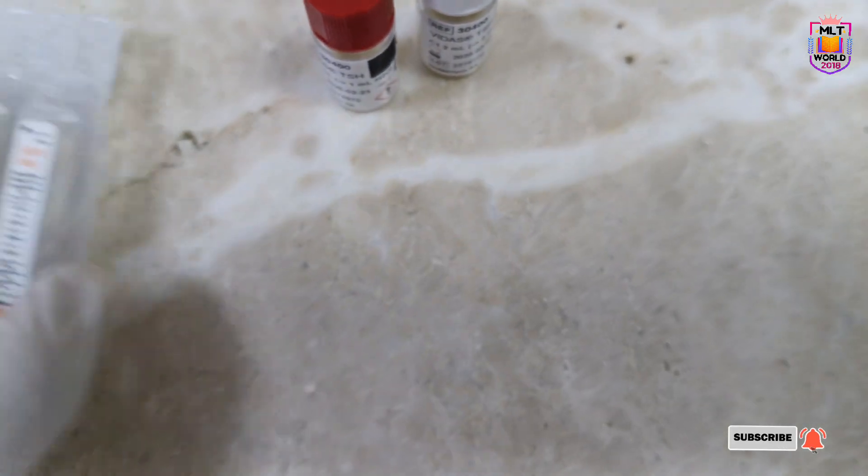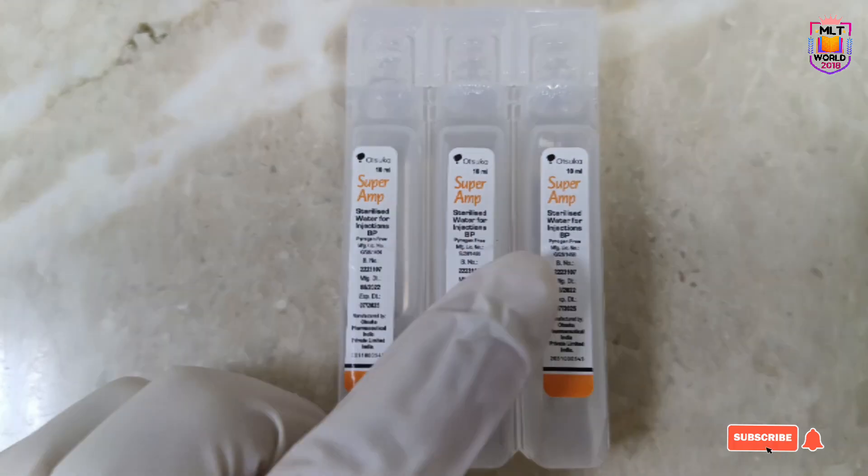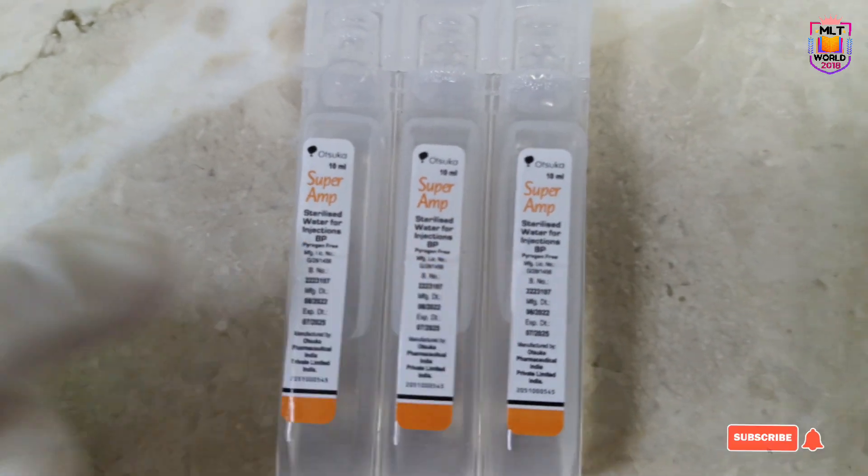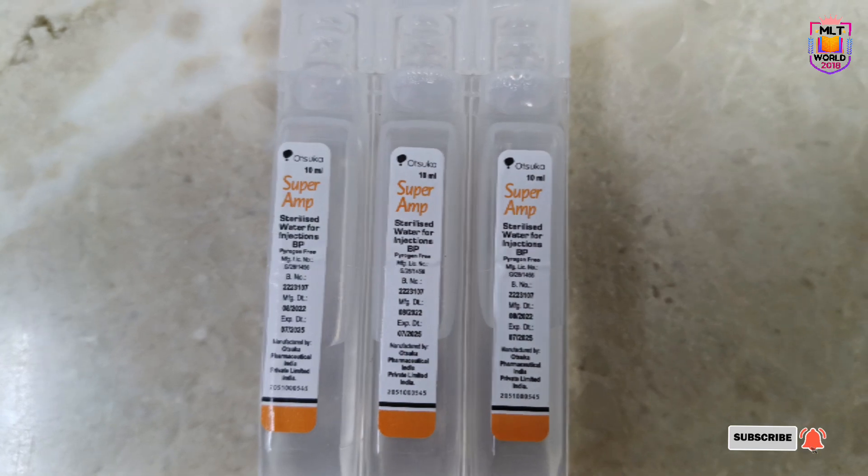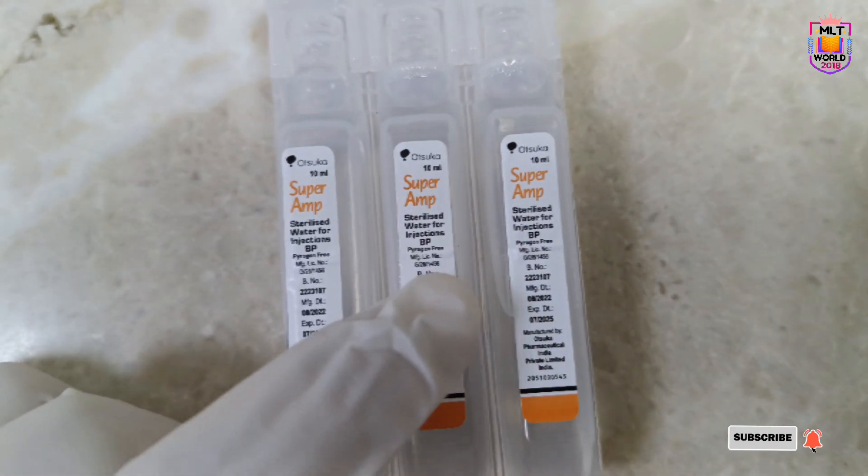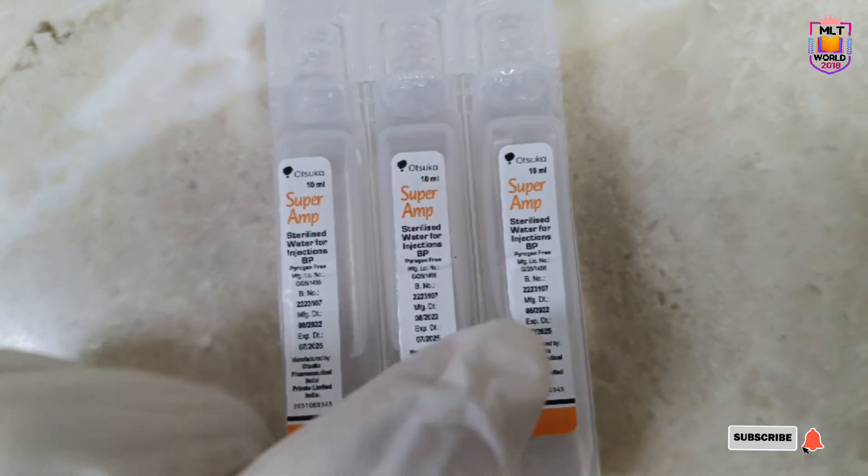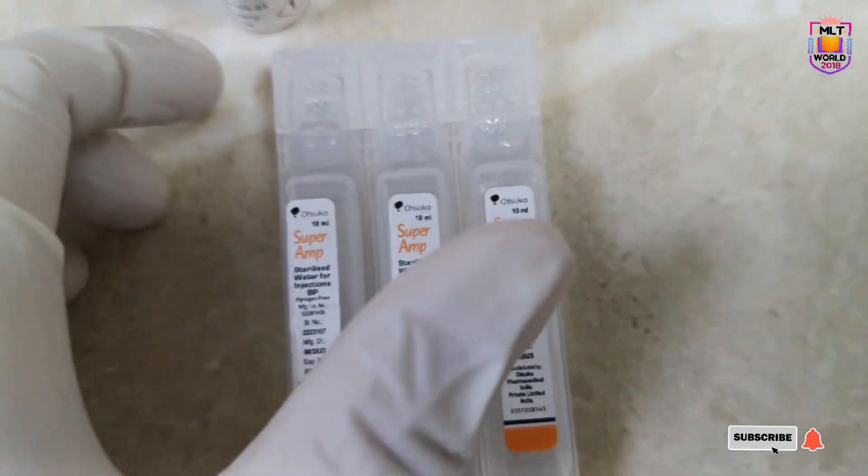We will use distilled water. If you have a distilled water machine and you're collecting water, you can use that. Otherwise, sterile distilled water injections are also available in 10 ml sizes that we can use.